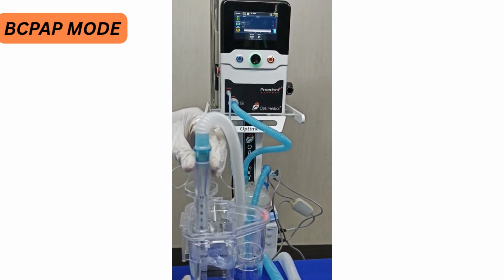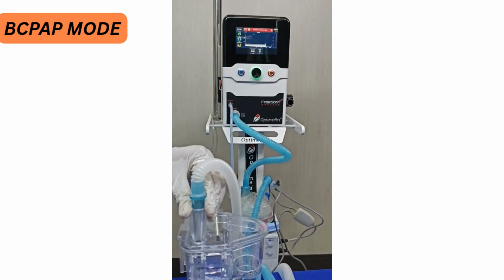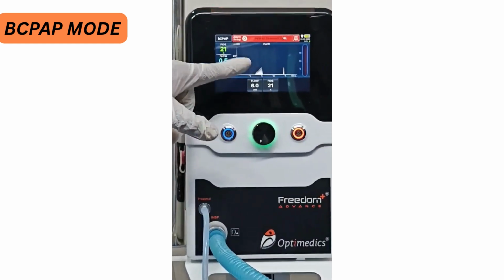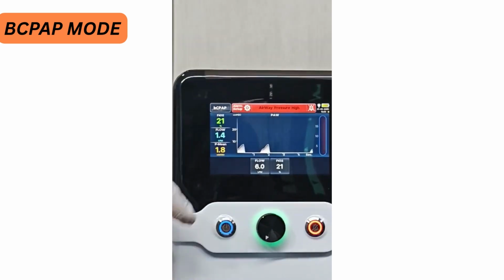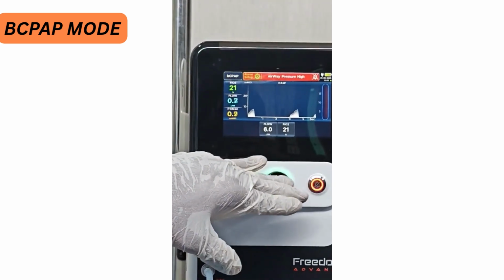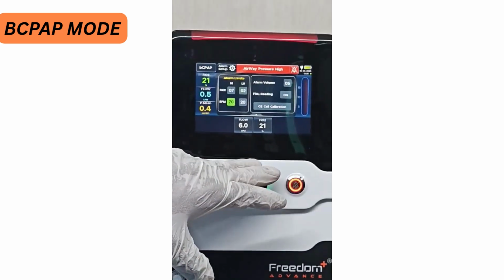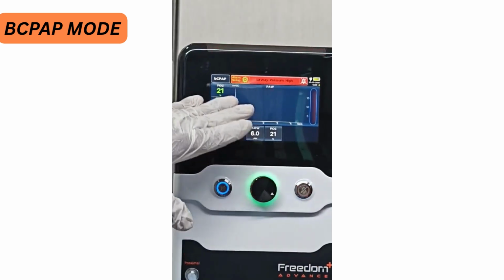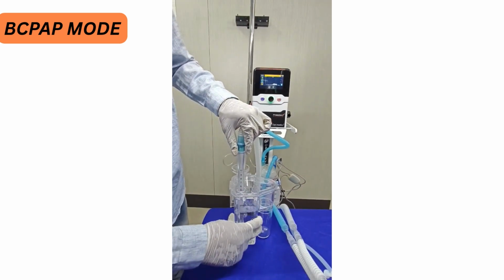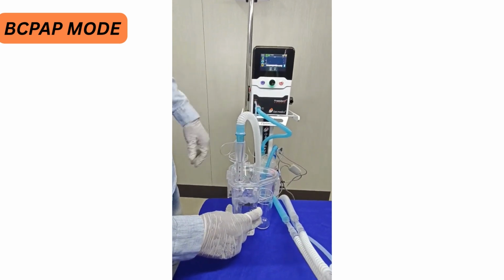I am going to put this stick completely into the jar like this. As you can see, the airway pressure high alarm came and the machine is cutting off the flow and opening the safety valve. It is not going to deliver the pressure beyond your alarm limit. The alarm can't be silenced because it's a high priority alarm. In order to resume the therapy, we need to again set your desired CPAP level and you can see therapy has started again.